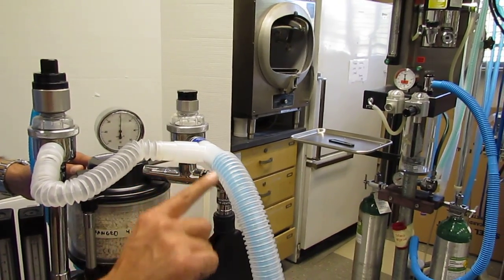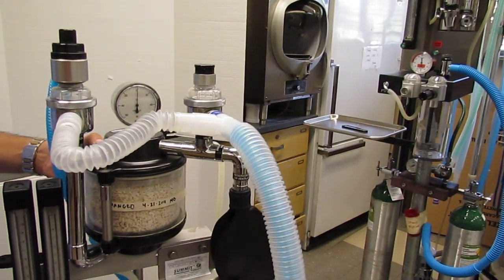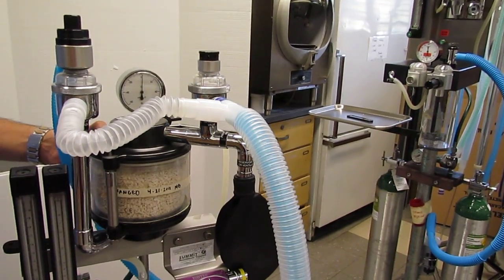the unidirectional inspiratory valve to be rebreathed again by the animal. This is why we're connected to a rebreathing circuit, okay?